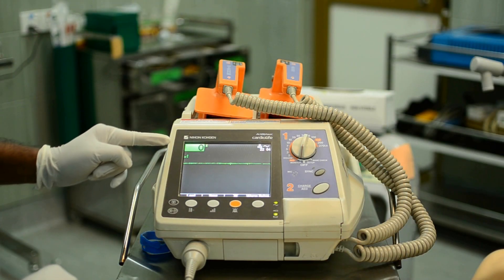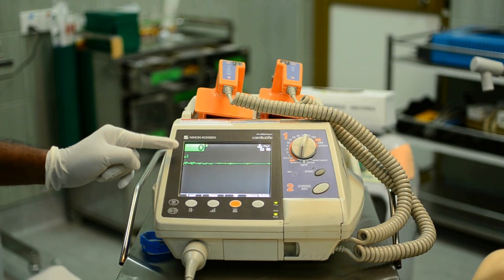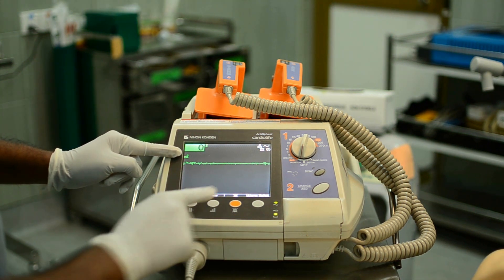Changing the scale. If the signal is weak, it makes it difficult to read. Press the scale button until you get the optimum wave size on the screen.